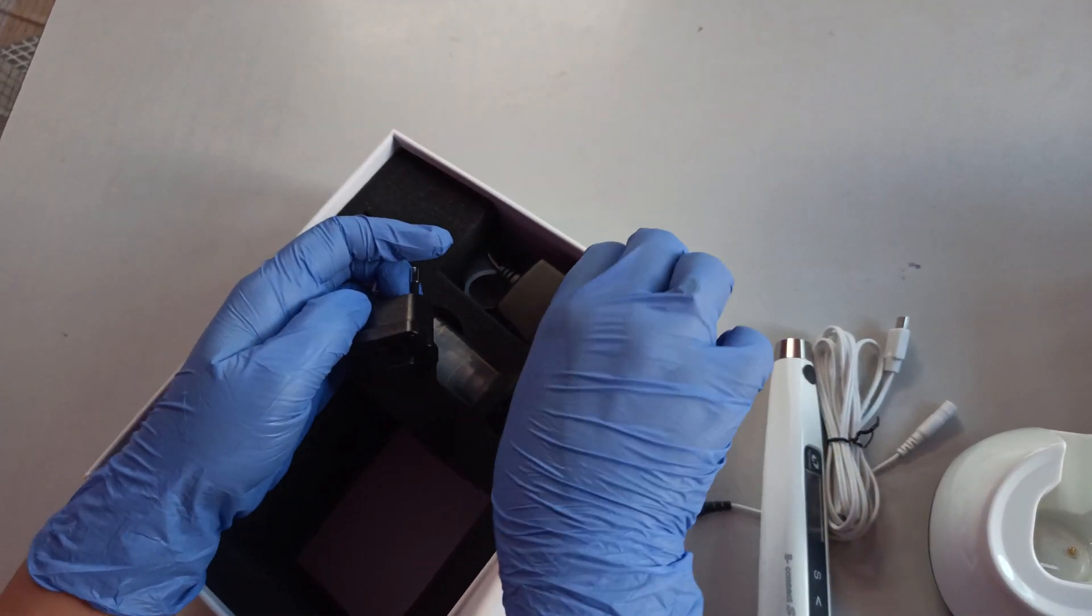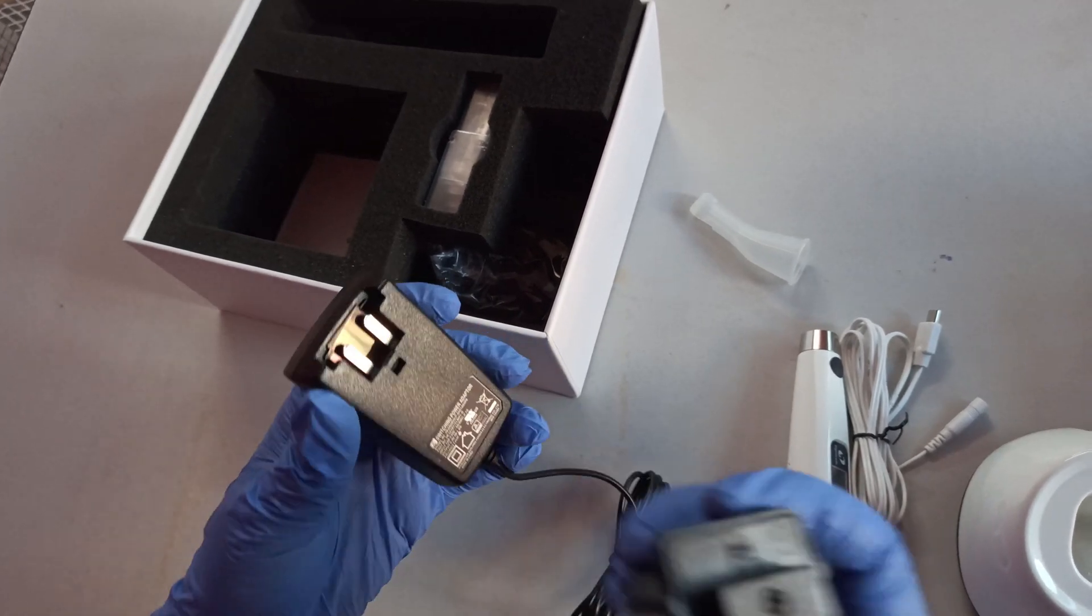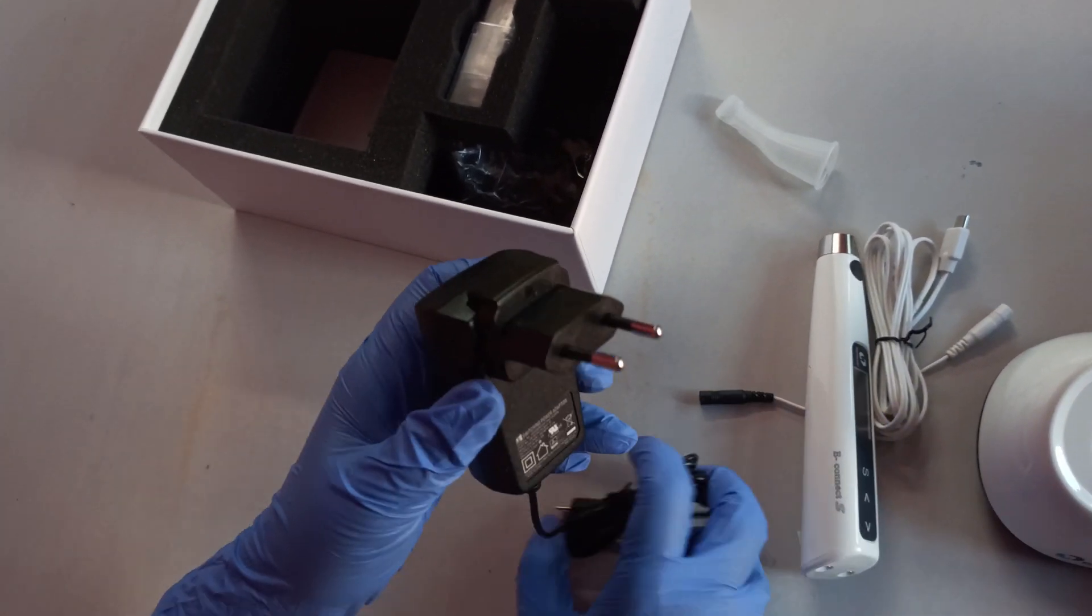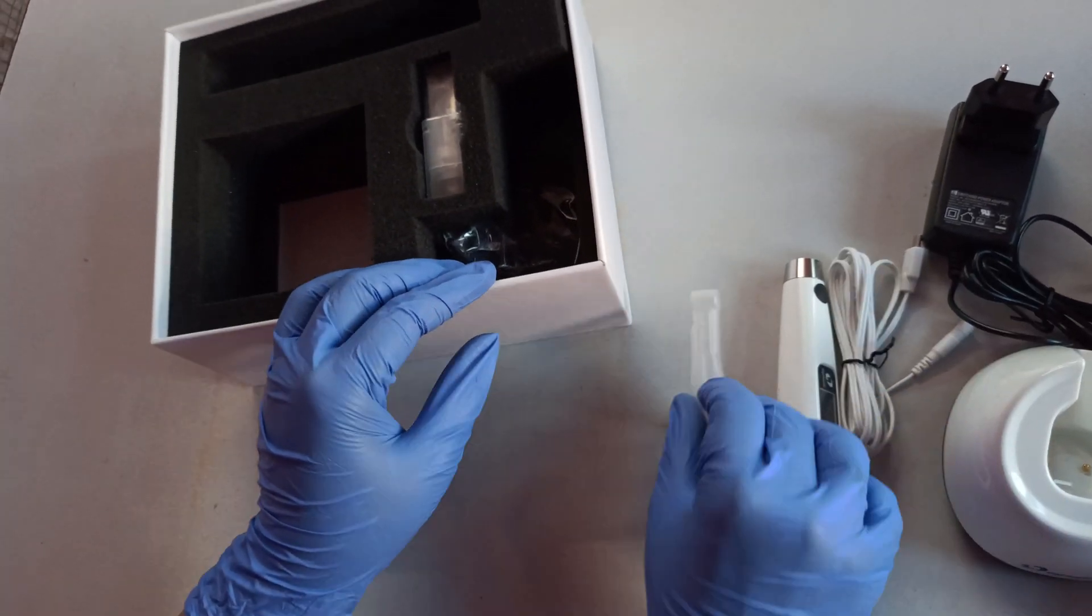Next, it comes with a charging adapter with a charging plug attached like this. It also comes with an insulating sleeve.